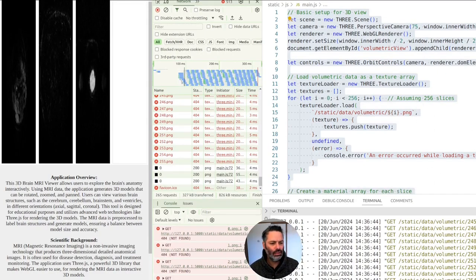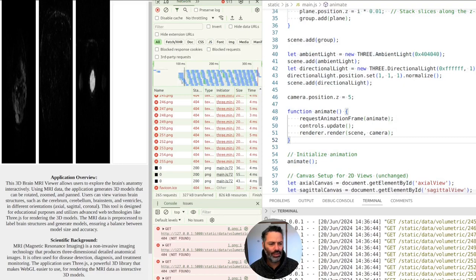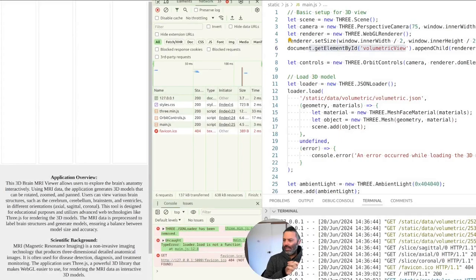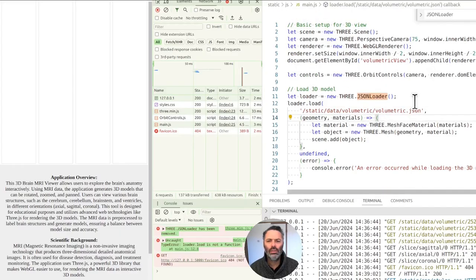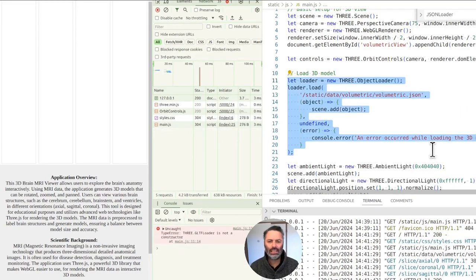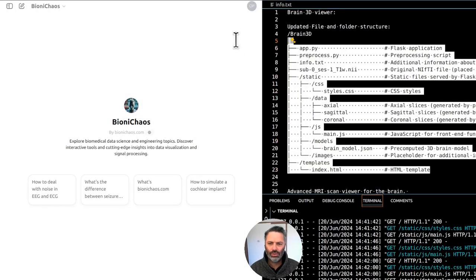The scene is basically generating the whole thing. We had a mistake — a message has been removed which means we can't use JSONLoader. Trying to use JSONLoader — then ObjectLoader — then GLTFLoader. It's a big switch. That looks correct.